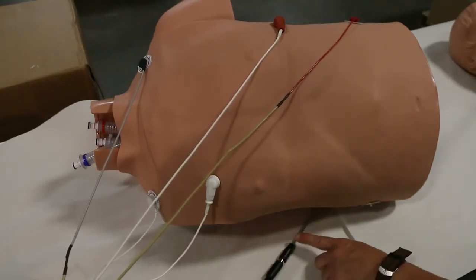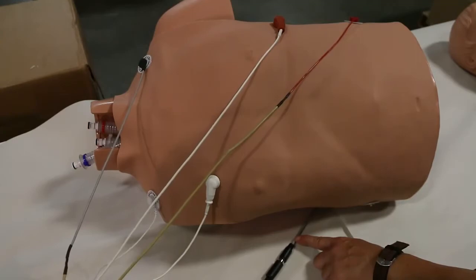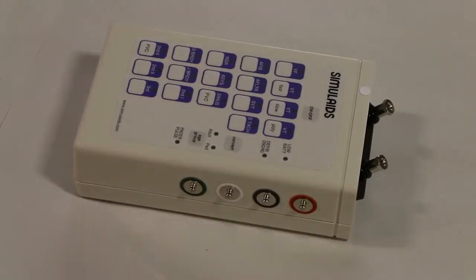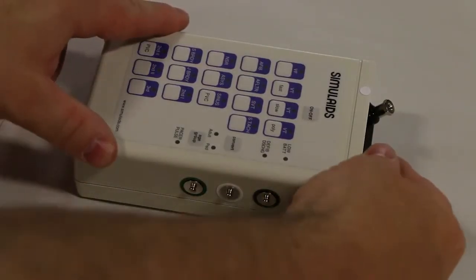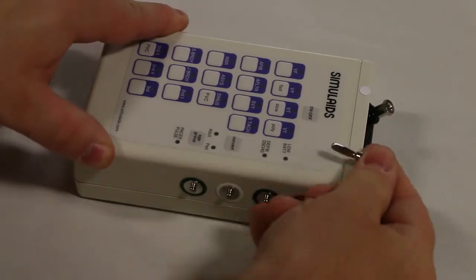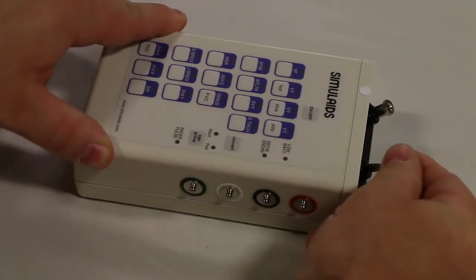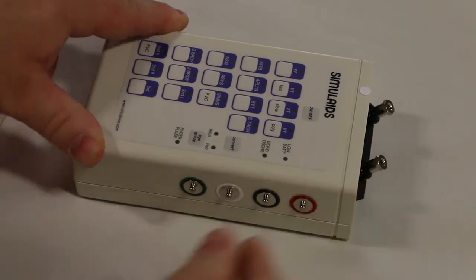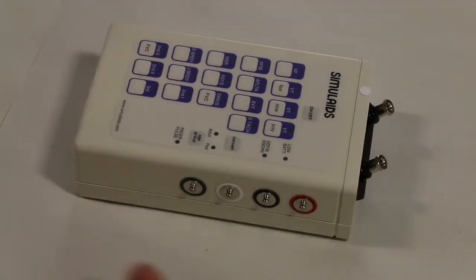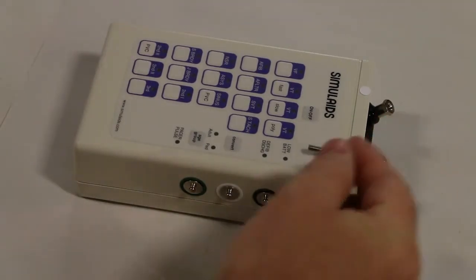The bottom gray cable is coming from the Rhythm Generator. The 102 Rhythm Generator can also be connected directly to the ECG. Here are the banana clips used to put the post for the training cables. Note these are different from the NASCO version and are not cross compatible.